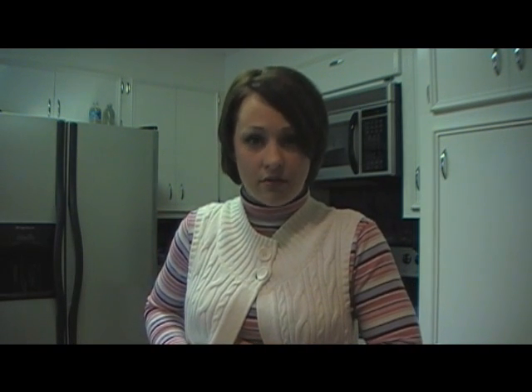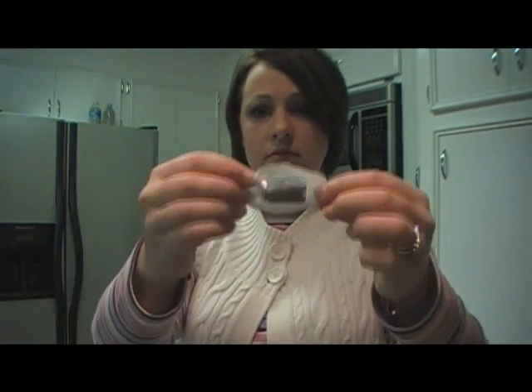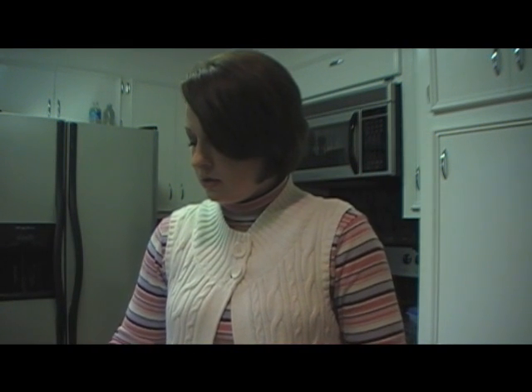What I do is I go ahead and insert the new one, and then I use the little tab thing to take the transmitter off of the old one, and then insert it. I'll show you exactly how I do it in just a second, but I've got to take the old one off — and all you really do is just pull it out. I just lay it to the side and I'll get to that in just a second.